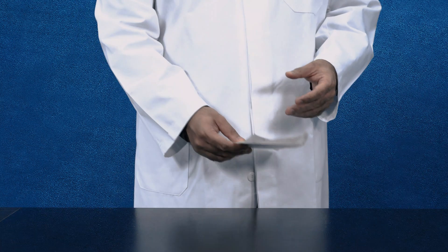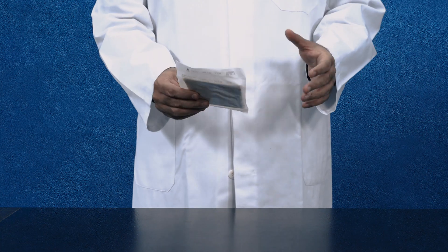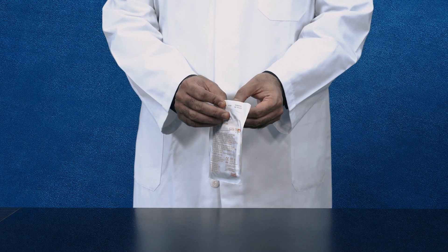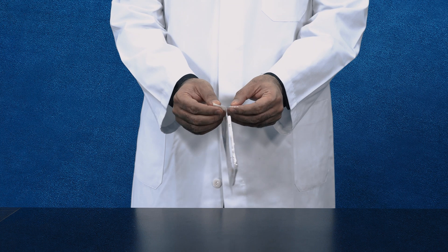one of the first things that should come to your mind is how to wear the gloves and how to take them off. So this video will talk about the same. When we want to wear a glove, how do we go about it? We have to open the peel pack. Let me show you how to open the peel pack.